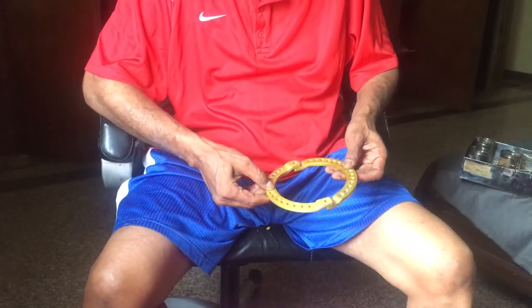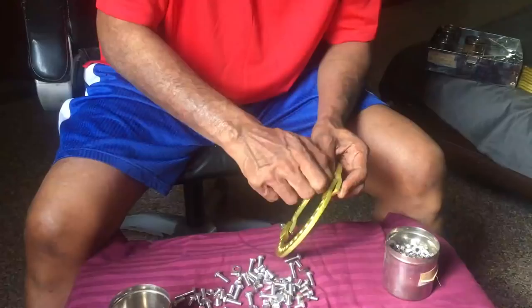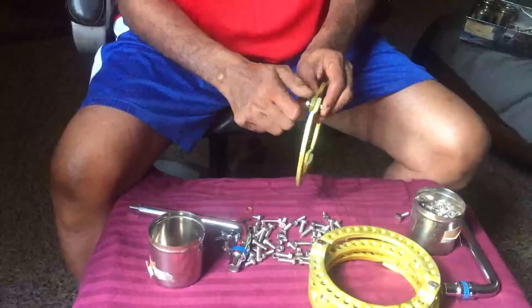In a prefabricated construct, we make a construct beforehand. The two half rings should be kept in the right way so that they are correctly aligned and are bolted to each other with ordinary bolts. Four such rings matching the diameter of the forearm to be used, leaving enough clearance all around, are now assembled.